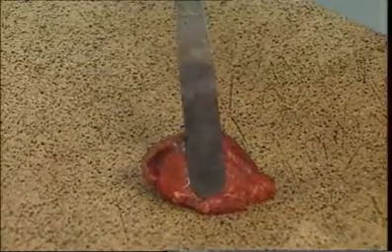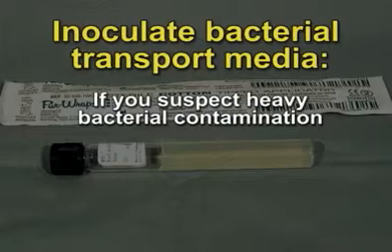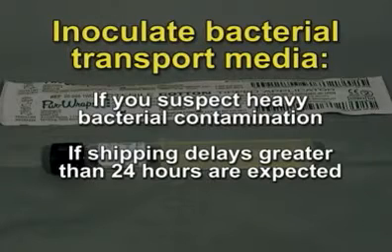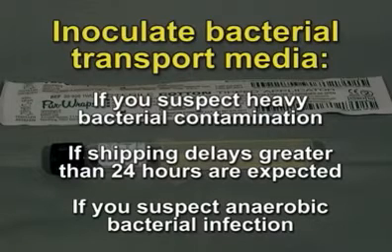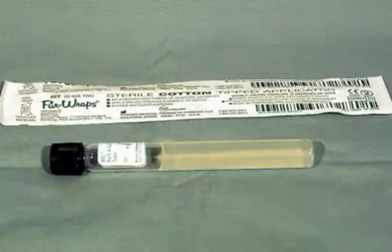The alternative method is used if the examiner believes a sample may be heavily contaminated, the sample is not expected to arrive at the laboratory within 24 hours, or the examiner has reason to suspect an anaerobic bacterial infection. In these cases, it is advisable to place an additional microbiology sample into anaerobic transport medium within 45 minutes of the animal's death.